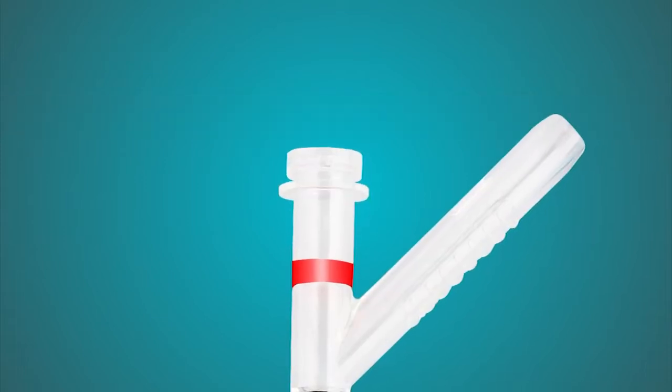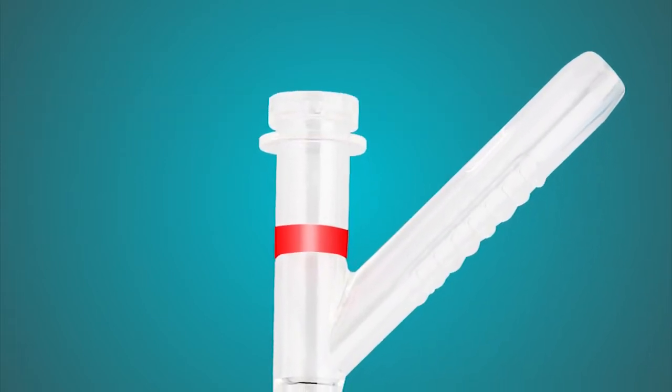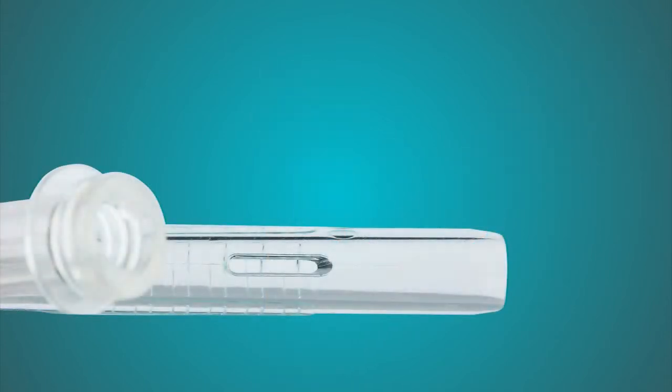On the surface, a red band at the proximal end marks the limit of the endoscope withdrawal. The straight and oblique tubes form a 45-degree angle. The oblique sluice allows unimpeded egress of the stone fragments.